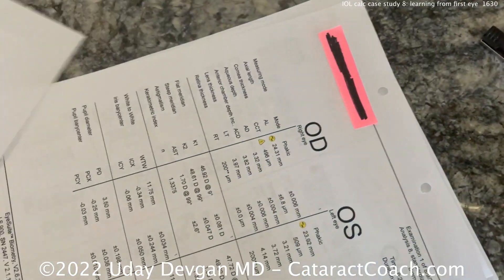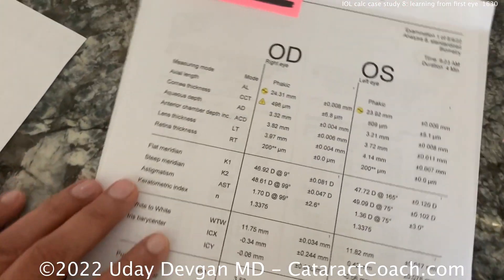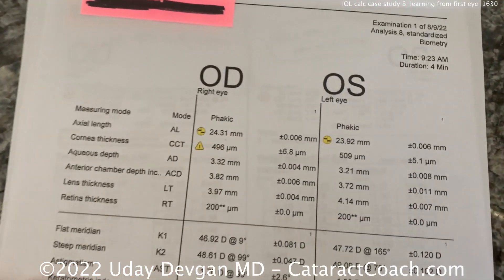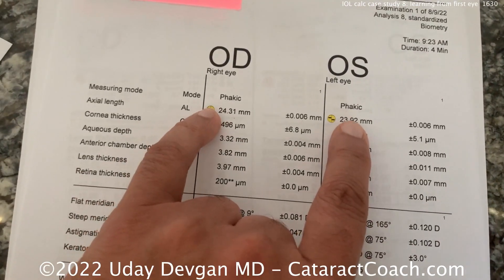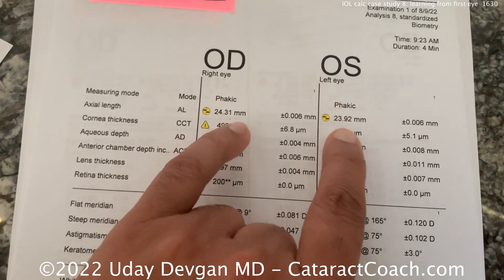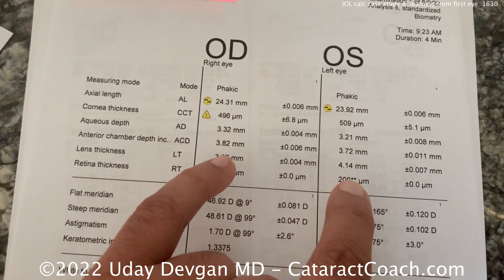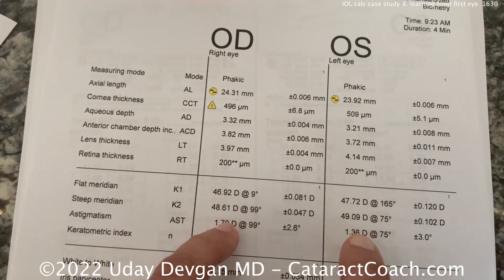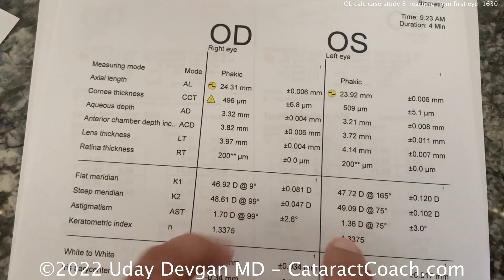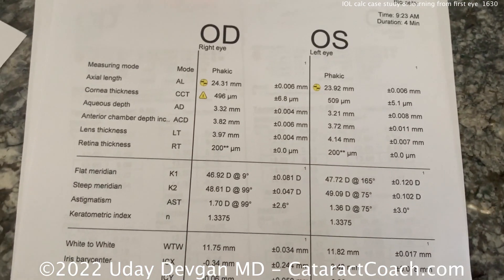Let's look at the calculation. Here's the biometry — not too different between eyes, not too bad. A little bit thin on the corneas. Both eyes have a similar degree of astigmatism, maybe a little more on the right. So things are pretty consistent. Remember, this is just anterior curvature. Everything else looks pretty clean.